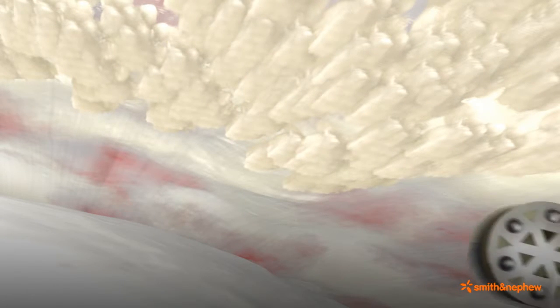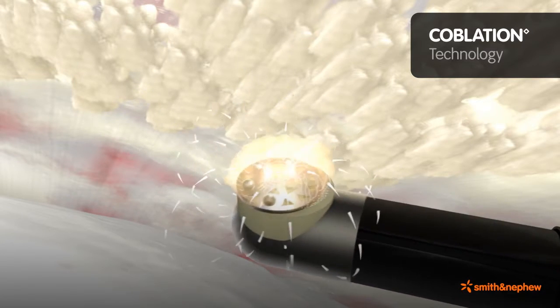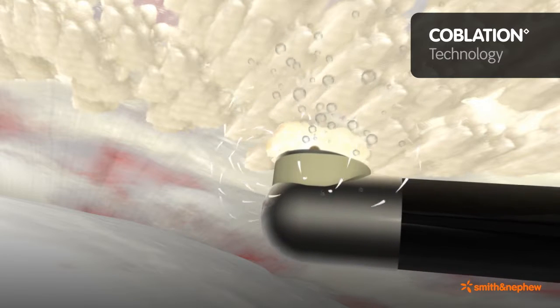The bipolar process of Coblation technology is capable of sculpting and removing soft tissue while simultaneously achieving hemostasis.